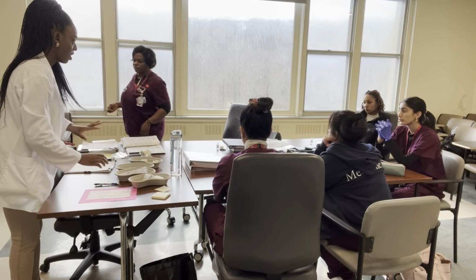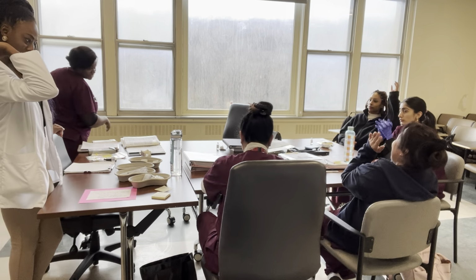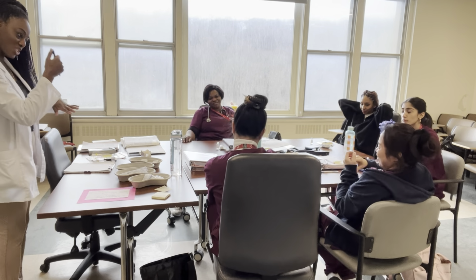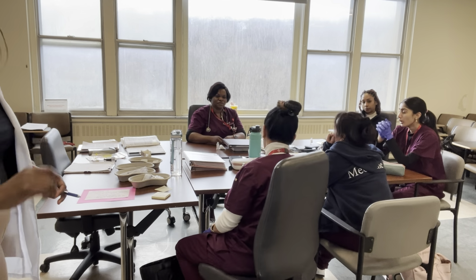No problem. Are there any questions so far? I'll help you in just a moment, just so I can get the next process going. You're holding it like this. No. Why are you holding it that way? Do you hold the syringe like this? Okay, so we're going to end that process, and I'll help you with the other one so we can go on to the next one. Okay?